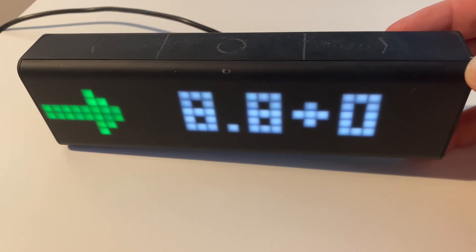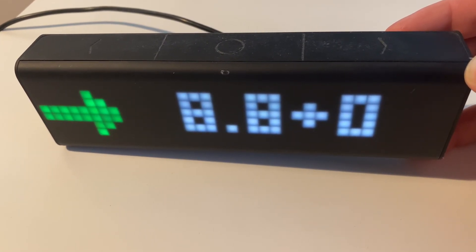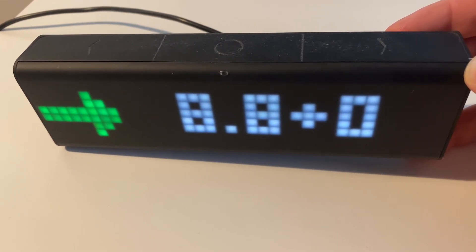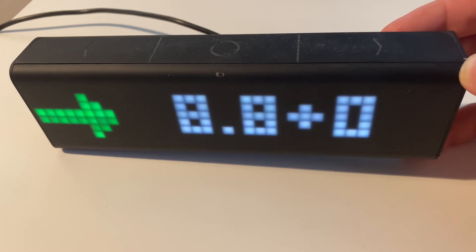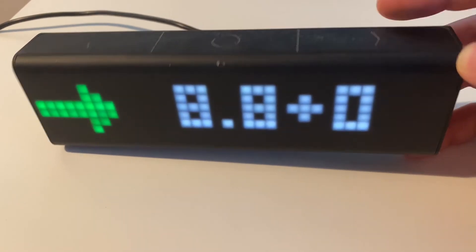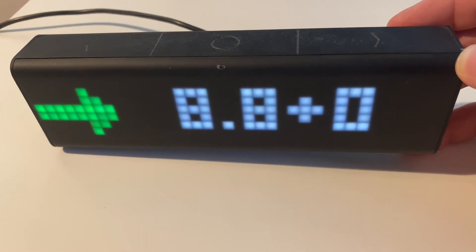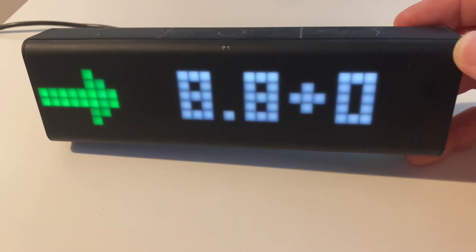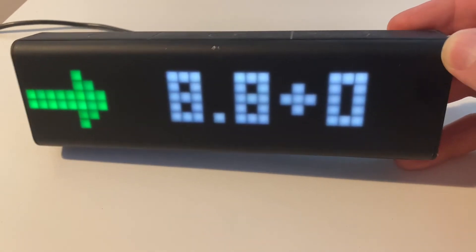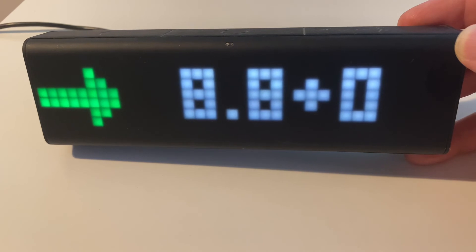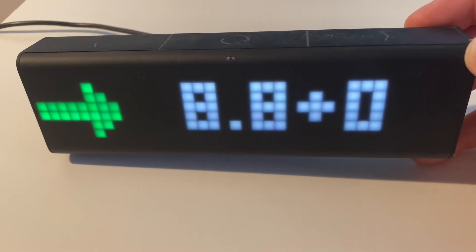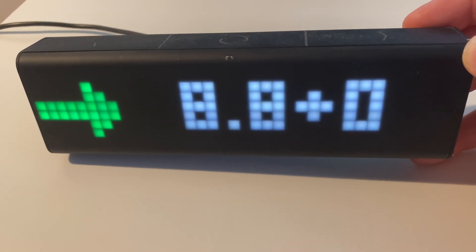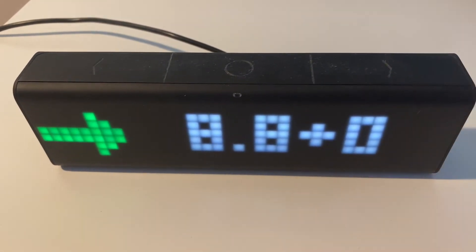Relatively simple. You need Nightscout, you also need a CGM device to send your data to the Nightscout device, and then all you need is basically to set this up with a particular app and set it to not display anything else apart from this one app, which is up to you really. You can display other stuff. And that's pretty much it. The instructions are below.